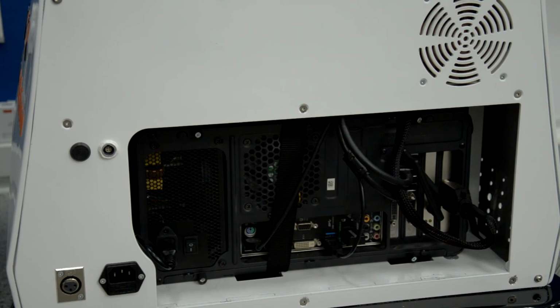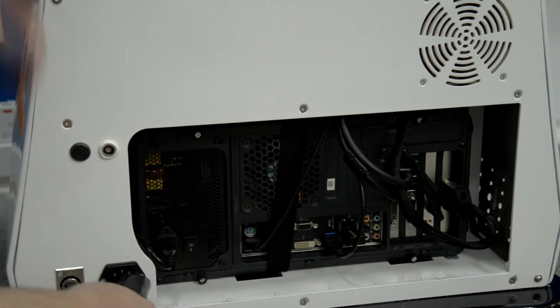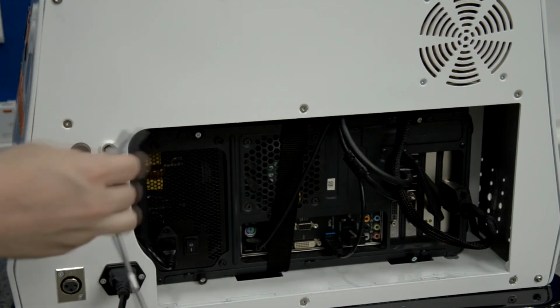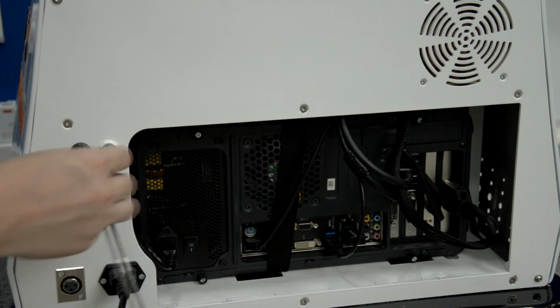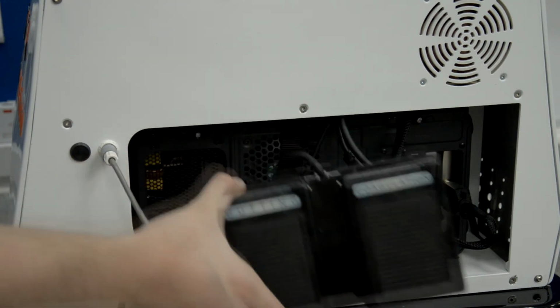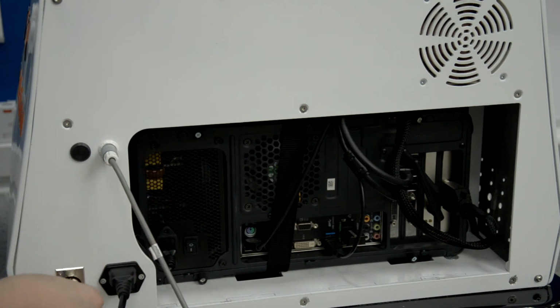And when you get your new simulator, all you have to connect is 3 things. They're right here. So first of all is the power cable, standard, connects in here. Then you are connecting your adapted hysteroscope. They are color-coded, and you have to align this little area here. Done. And the last thing you have to connect is your pedals, right there. And the connector only goes one way and it has to click into place. And to remove it, you have to press the button and pull it gently.